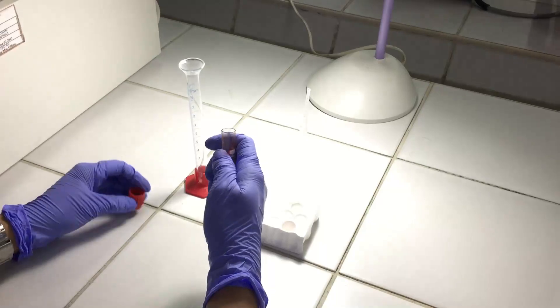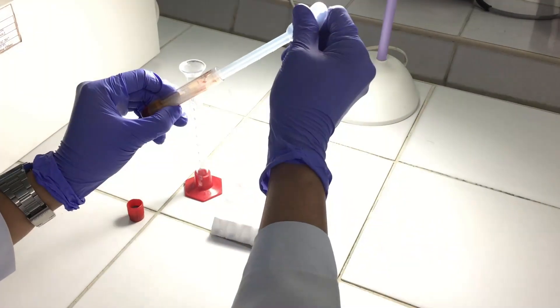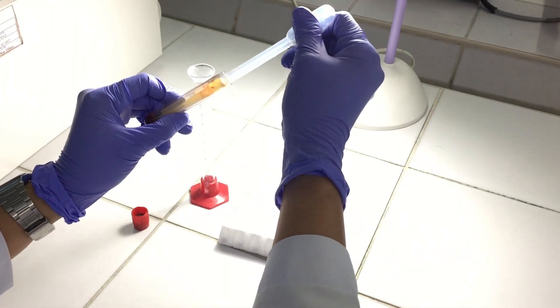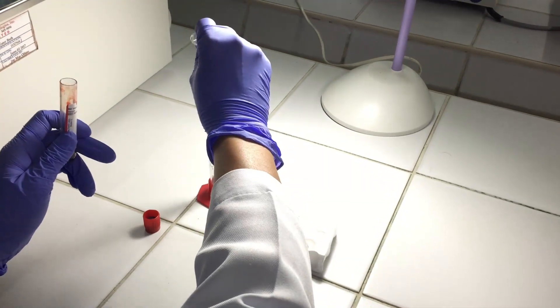Measure the volume of the serum left remaining in the tube by transferring the sample into a graduated cylinder using a pasteur pipette.